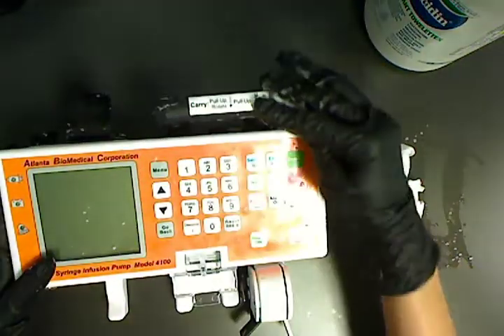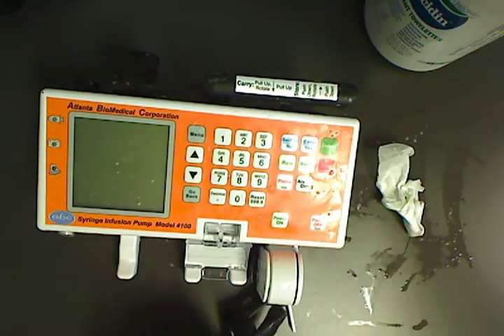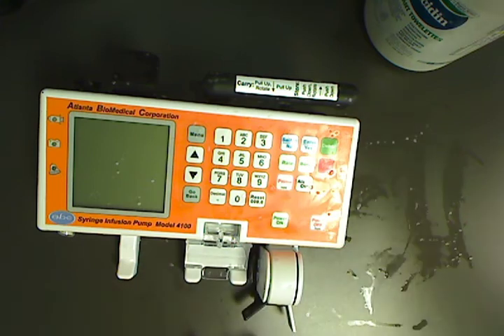When you're done cleaning, remove your gloves and properly dispose of them and then always remember to wash your hands prior to your next task.